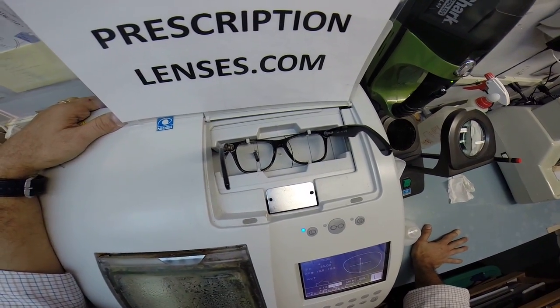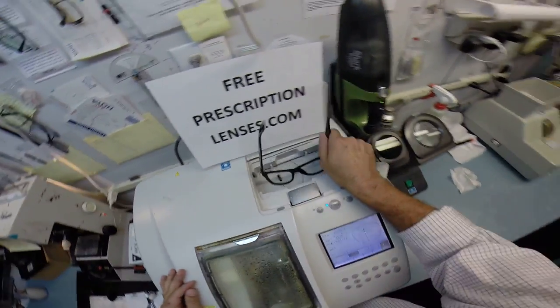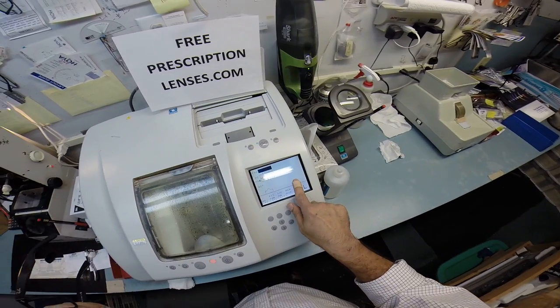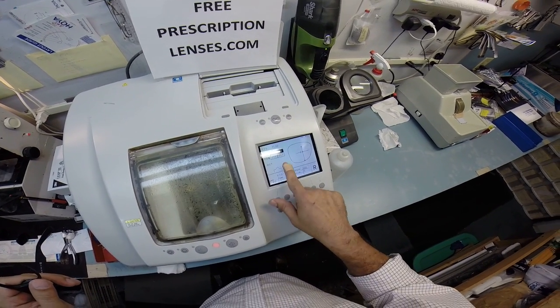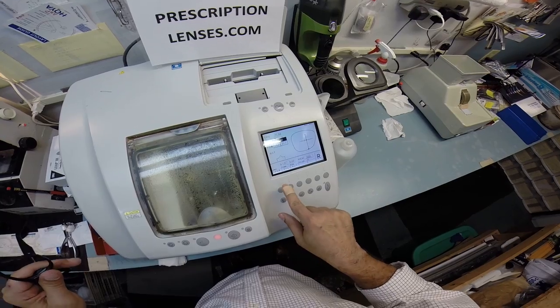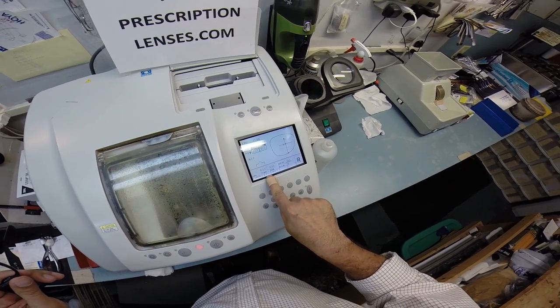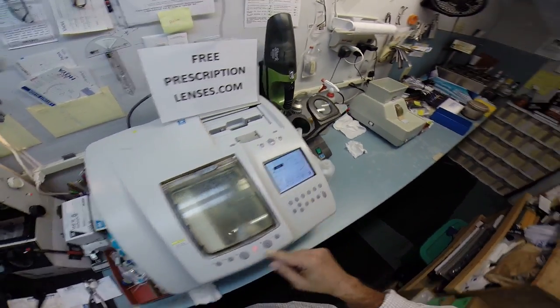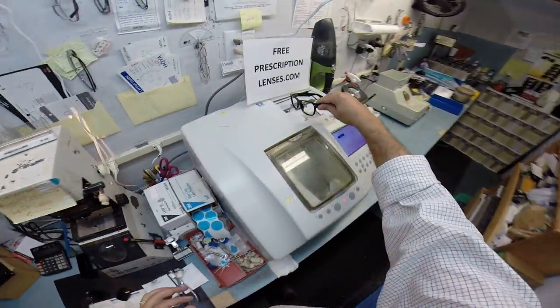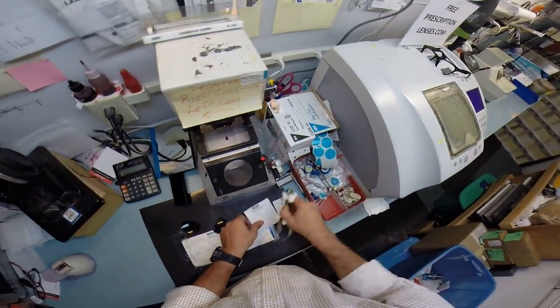Of course, you did not buy the frame from me, so your lenses are not free. I'll pull the shape up on the computer, put in one measurement there, and I've got to program some more. And this has been cut for a plastic frame. Set that down there.